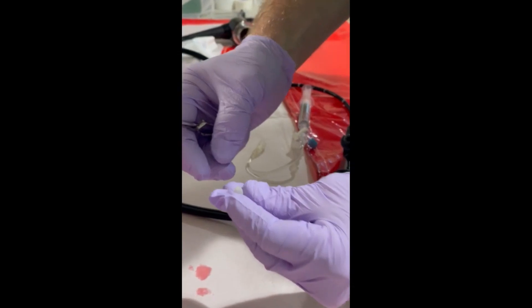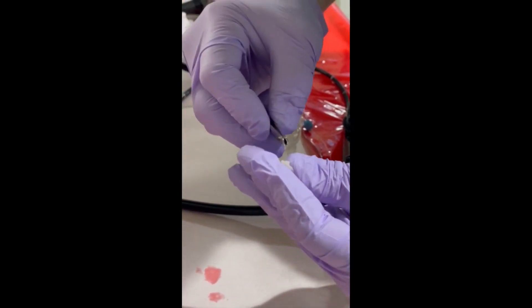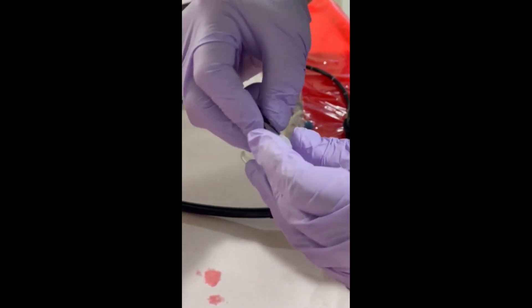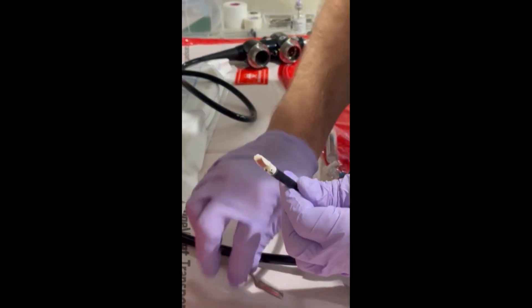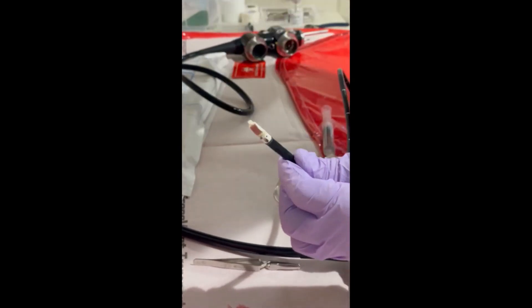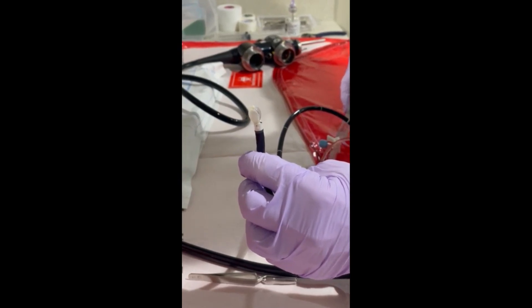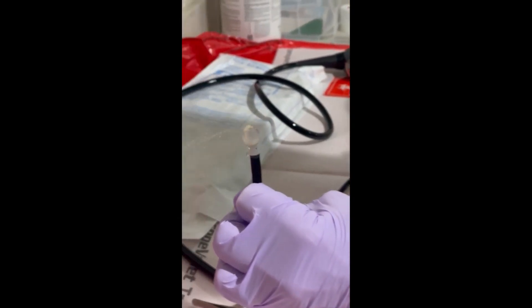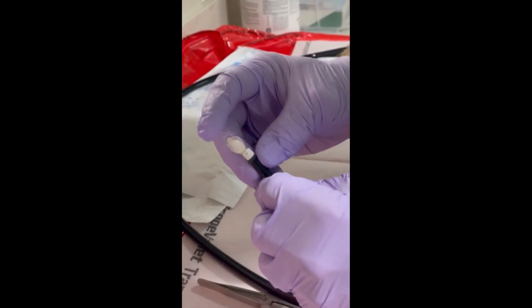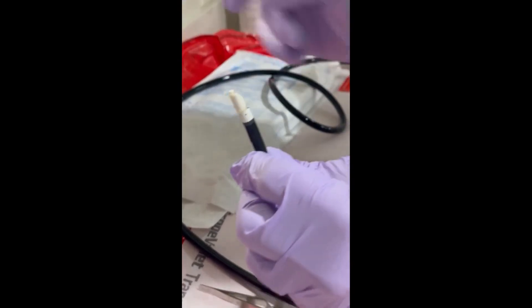First, insert the jaws of the applicator into the balloon. The jaws can then be opened to confirm adequate placement of the balloon. Next, expand the jaws of the applicator to place the balloon over the distal end of the transducer. Flush with saline to inflate the balloon and ensure that all air has been removed from the system. Then attach the distal band of the balloon to the tip of the ultrasound probe. The balloon can now be re-inflated and is ready to use.